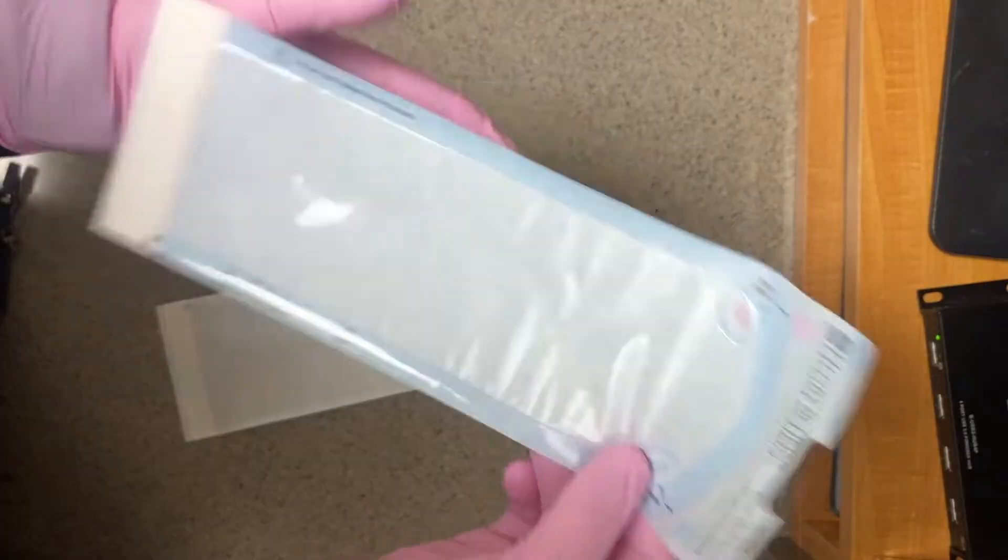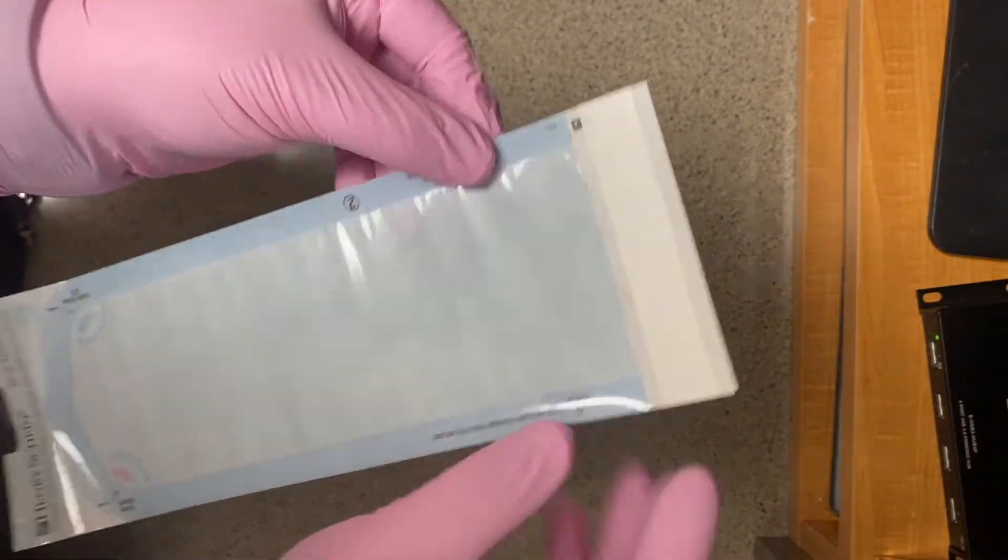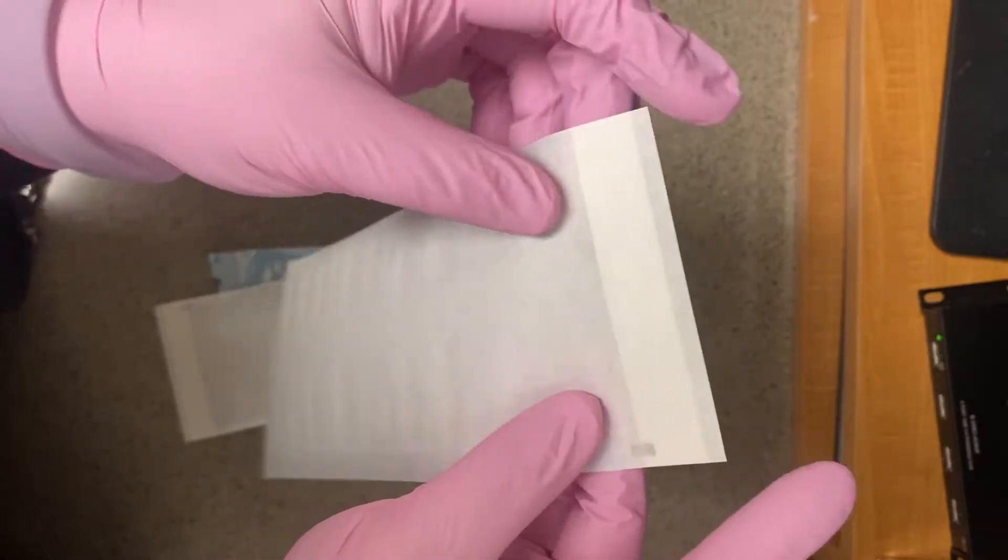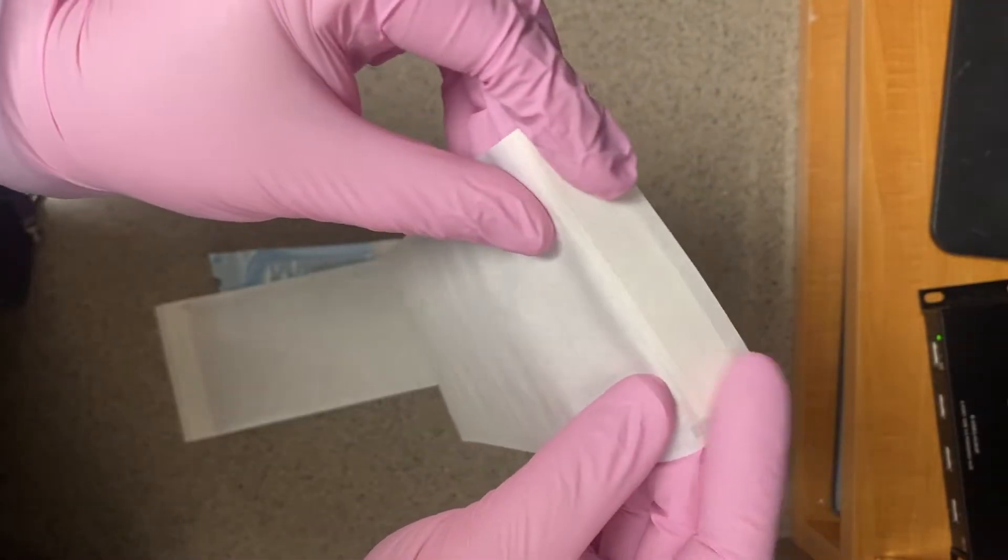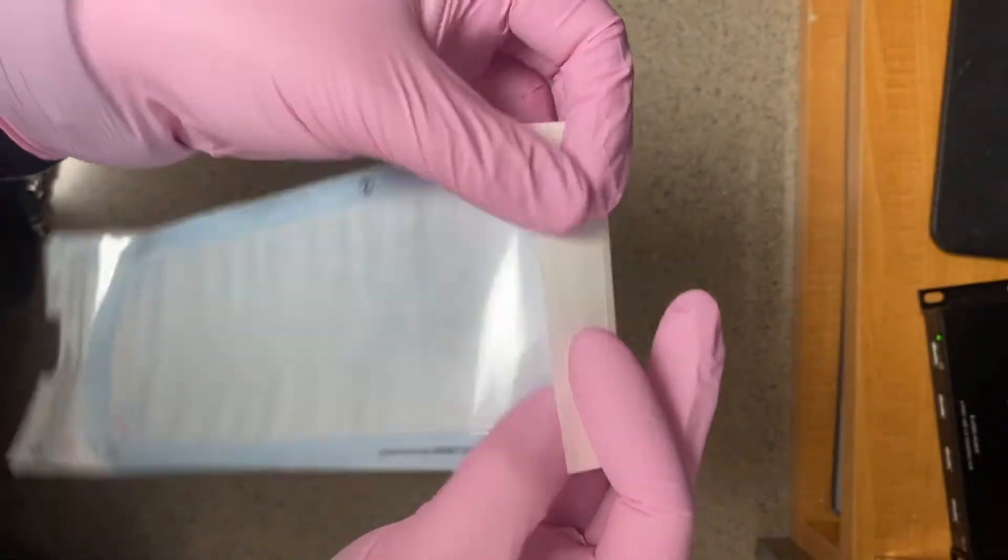Did you know there is a proper way to fold the tops of your sterilization bags? If you look at your peel bag, there's a little perforated part on it. That's where we want to close and seal our bag.